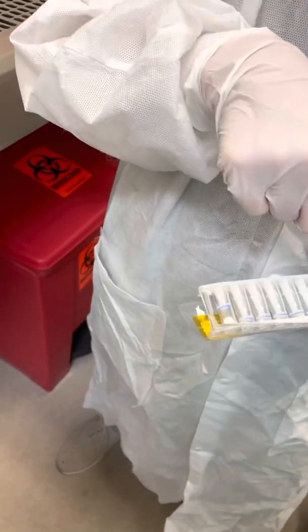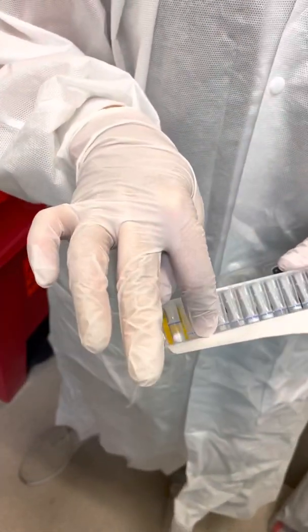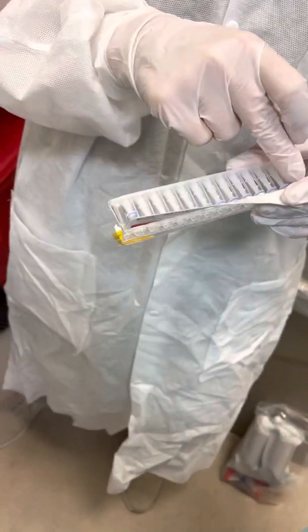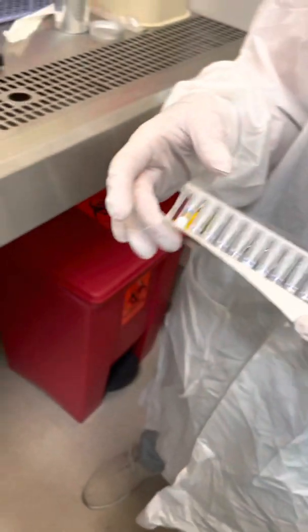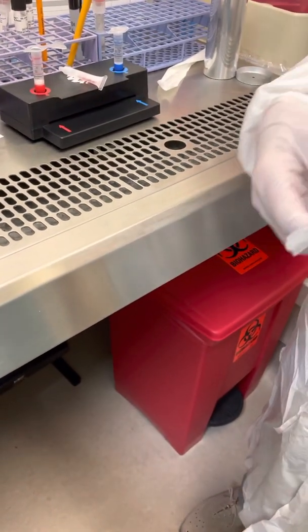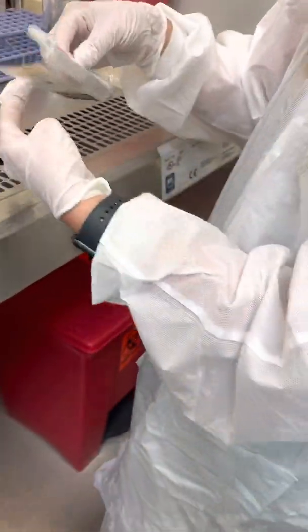Not every well has—that's okay, it's still going to hydrate. Not all the wells have freeze-dried reagent but they'll all hydrate. But they all need to be hydrated. This portion of your pouch, this is where the PCR takes place. This is going to slide underneath.